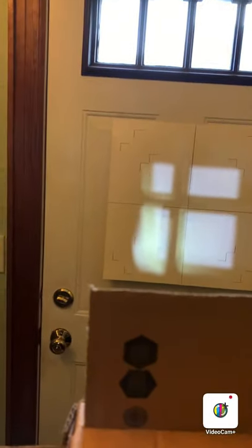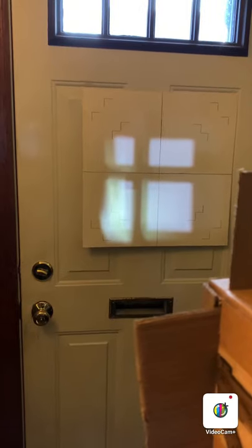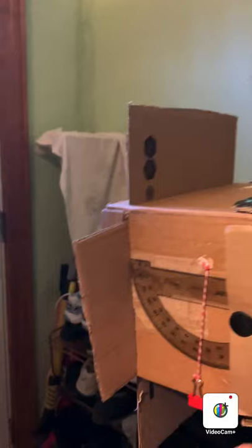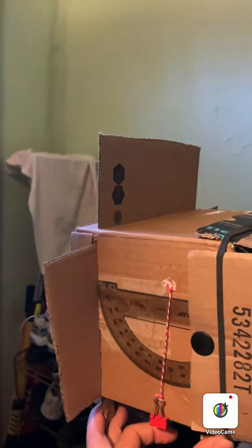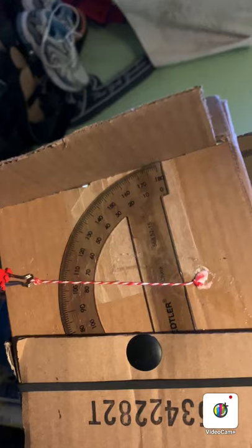Of course, you will need to adjust your upright bucky to match your crosshairs, but that's an easy fix with tape. Another thing I can do with this system that you can't see in the YouTube videos is also make this a tabletop version. With the upright version, I can measure my angles. When I tilt my box down, I can actually measure out the angles and get a reading, and you can see that on the upright bucky — which I think is pretty cool.